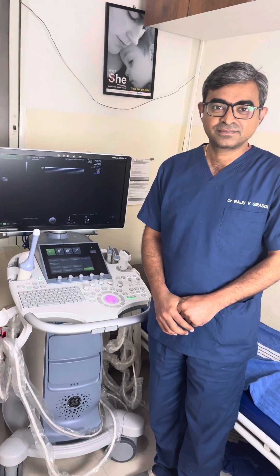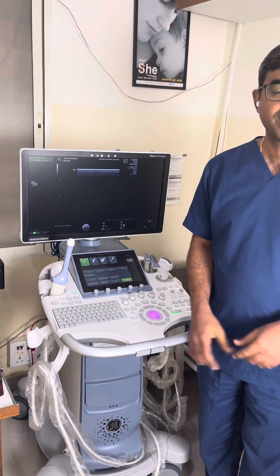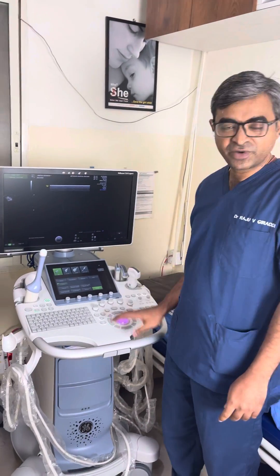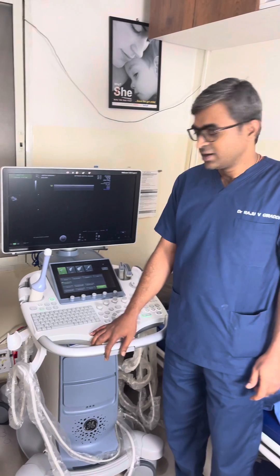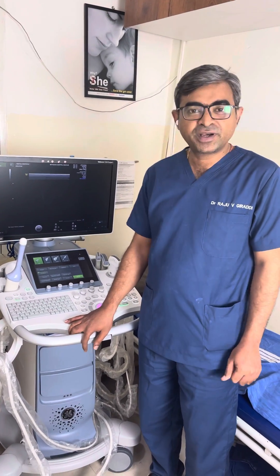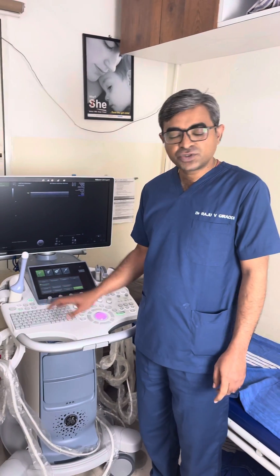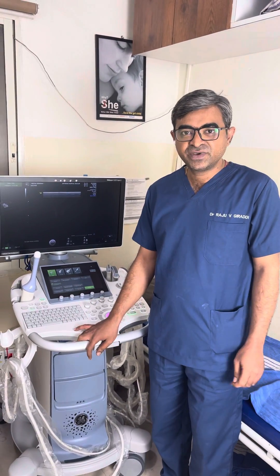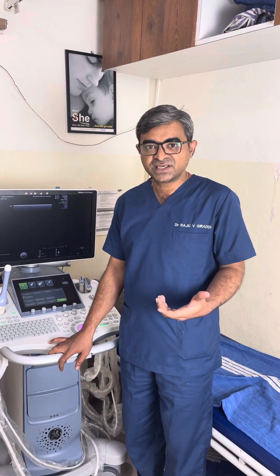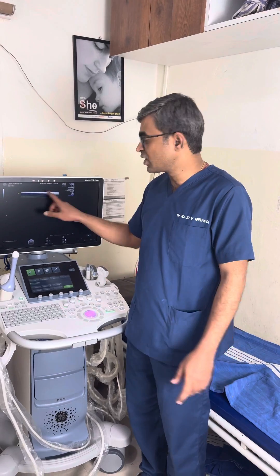Hi Raju, please tell us about the kind of probes you are using in your machine. Thank you very much sir. Basically, this is what we call an ultrasound unit. It has the monitor and the other complex boards here, but what is more important in the ultrasound machine are the probes. These are the most important things where we actually get the frequencies which are later transmitted to the motherboard and they create what are called images.